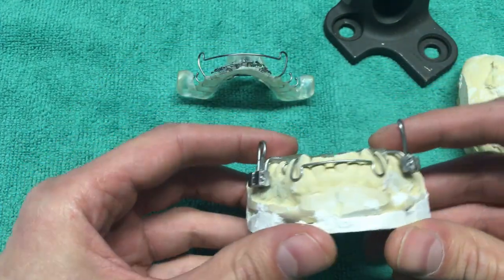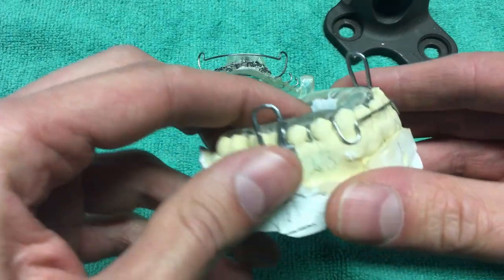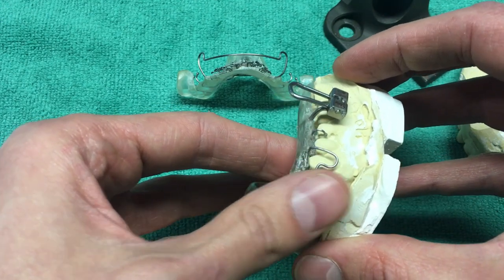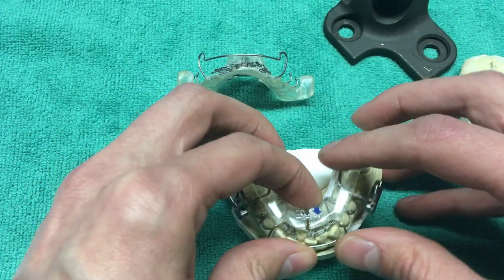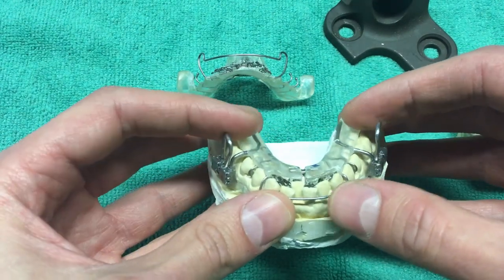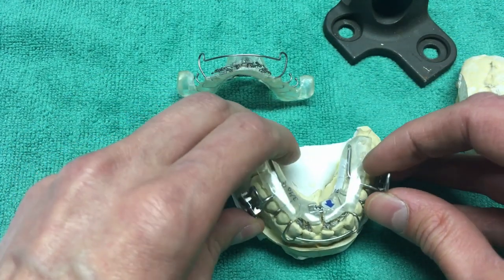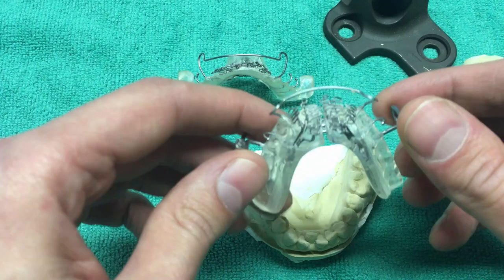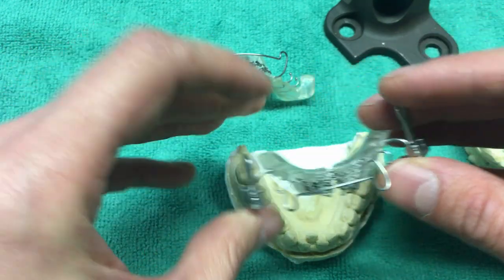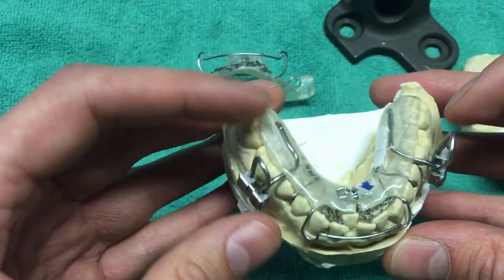These things go into my mouth and sort of catch with these little barbs here, just to make sure it snaps in correctly and retains. Over time, as everything starts to move out, the springs don't really hold it — they don't have a lot of force and you really don't feel them. So these little hooks here with the ball on them hook in between teeth.